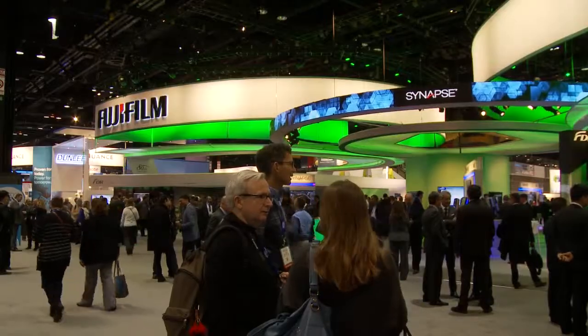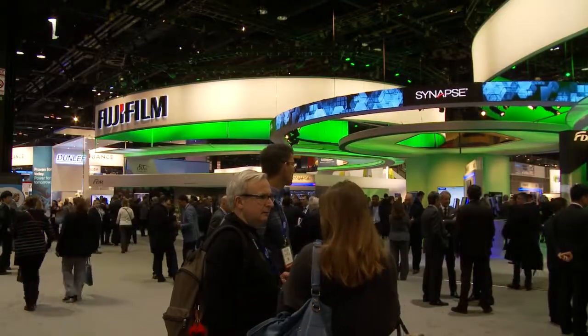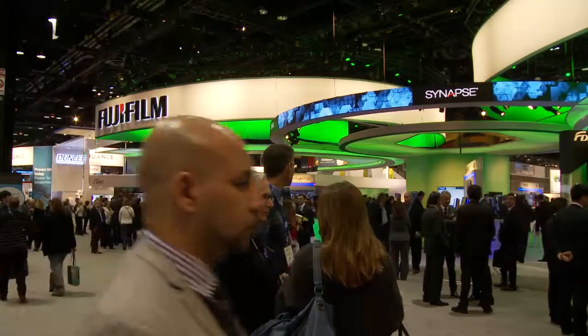Hi, my name is Bill Lacey, Division Vice President, Medical Informatics and Enterprise Sales. We'd like to welcome you to the 2014 Fujifilm booth at the 100th RSNA. This is also Fuji's 80th anniversary, and we have a lot of innovation at the booth. We would like to give you a tour of our medical informatics portfolio.